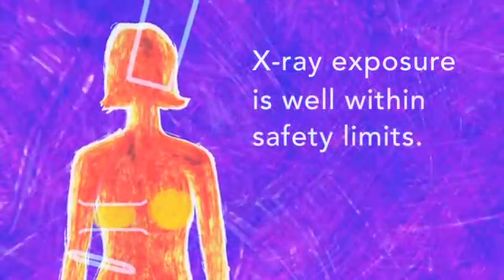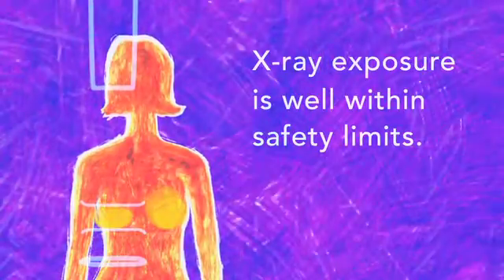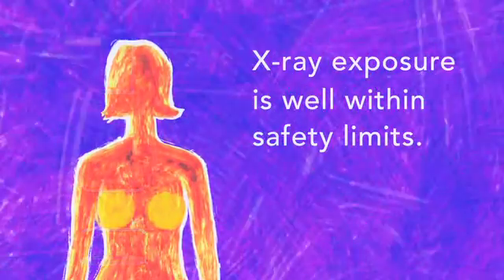And yet for all the extra clarity it brings, your x-ray exposure is only about the same as a traditional mammogram done on film. That's well within the safety limits set by the health authorities.